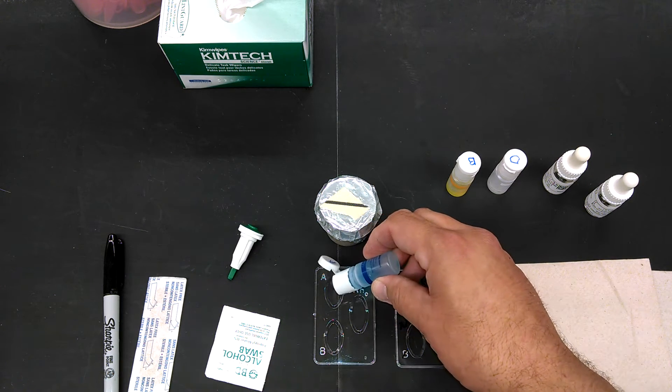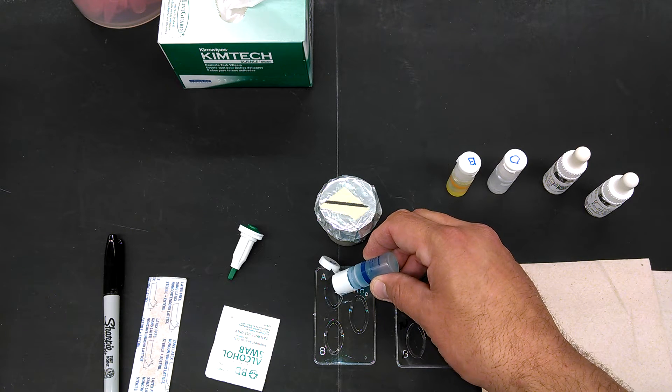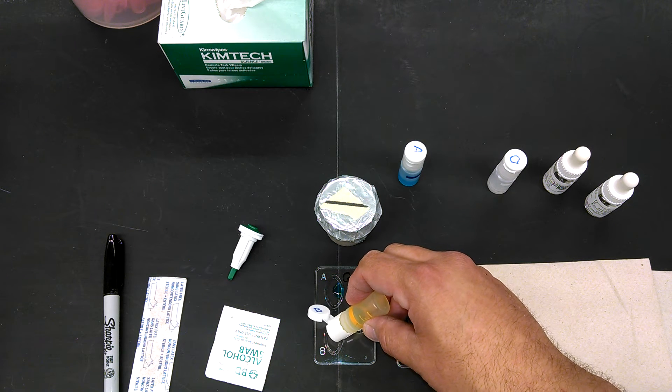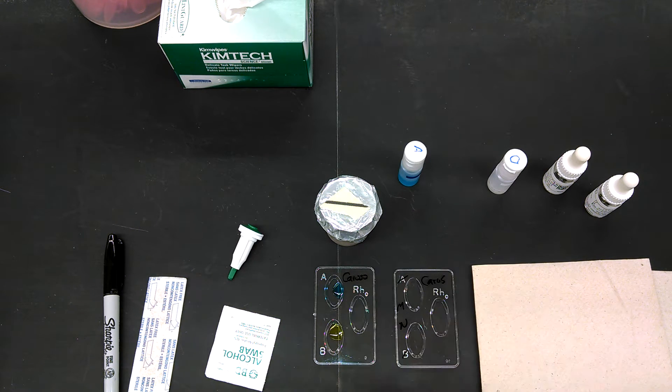What you do is put a drop or two of antibodies into each well, the correct well.